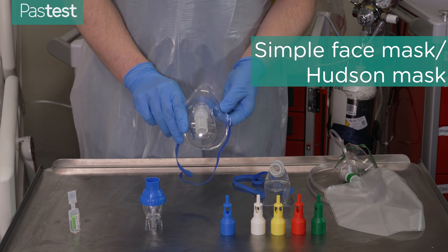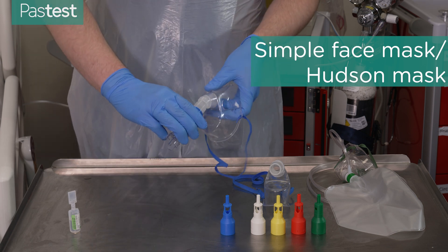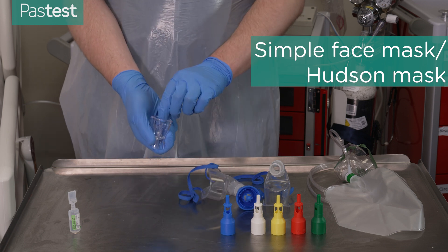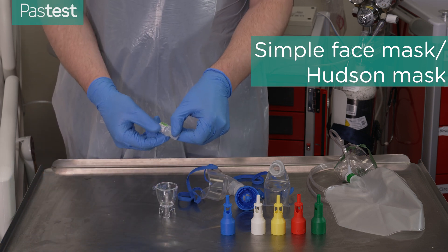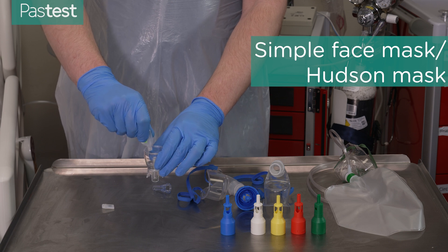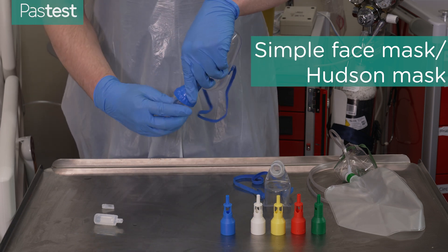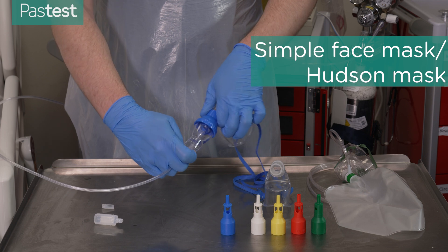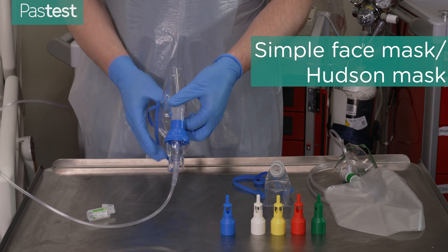Here's what a simple mask looks like — it often has two-way valves on the sides. We have a nebulizer attachment here which we can attach to the mask and put medications into, that the patient can then inhale. We have some saline here — we check the drug name and expiry date — and then we put this into the nebulizer, attach it back onto the mask, and then attach our oxygen either from a cylinder or from a flow meter on the wall to the bottom of the mask. Now it's ready to go on the patient's face to cover their nose and mouth.